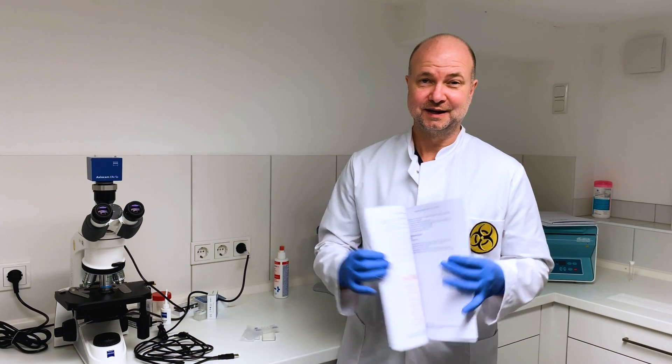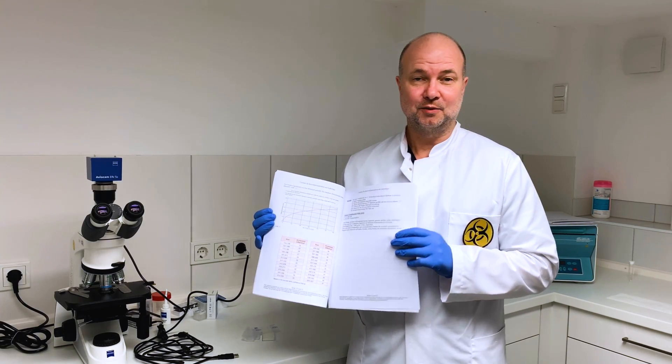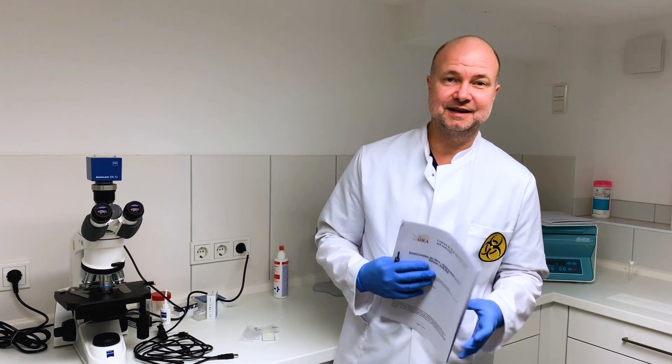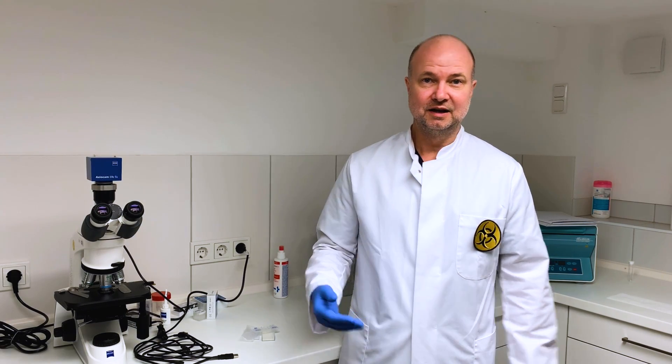I just wanted to show you this. This is what I'm using for calculation. These are my tables where I look up my results because as I said I always have to double check all my results and if I'm wrong I have to do it again. But today I was lucky. It just took me about two hours to get the results and I'm quite satisfied with those because there wasn't much spreading.